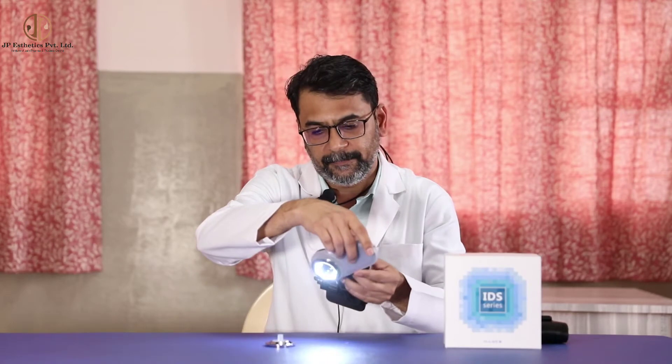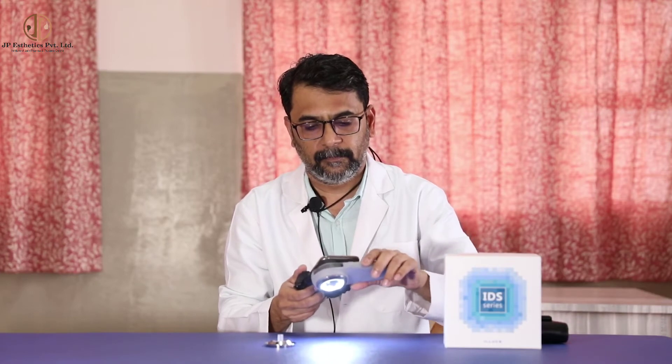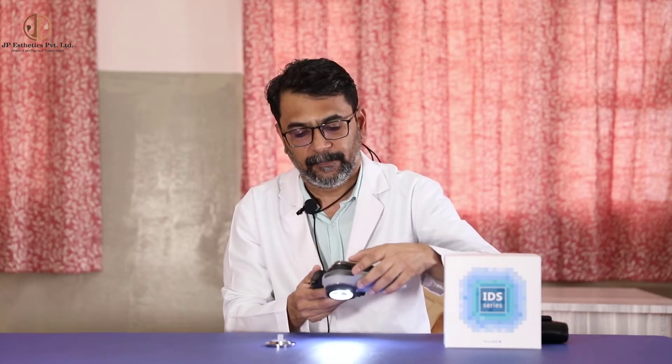Now we will turn this on. Always remember that this is a rotator — it rotates the dial of the dermatoscope so that the face plate should always be in the midway of this rotator. Only then is our dermatoscope well focused to capture very good images.